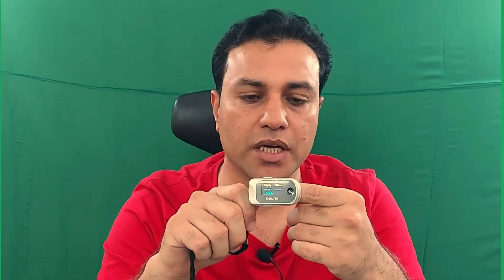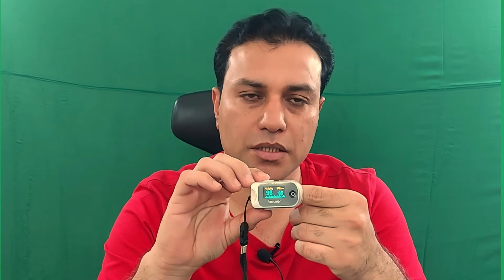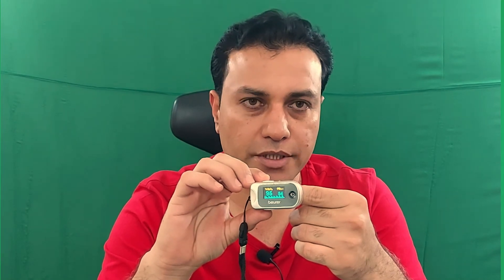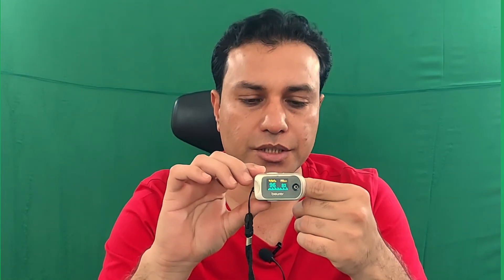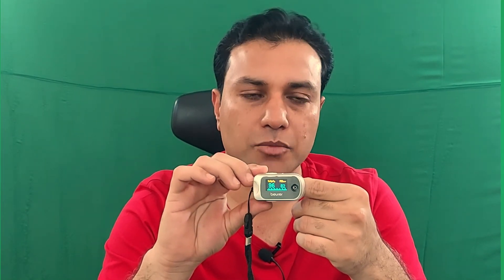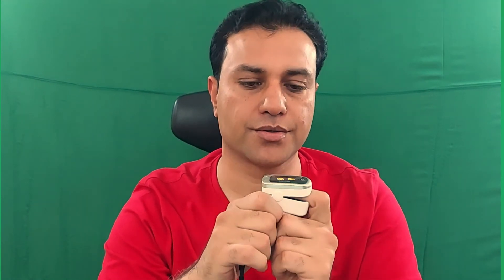One last thing about the oxygen saturation level: medical health practitioners consider above 90% to be a normal oxygen saturation level. If the oxygen saturation in the blood becomes lower than 90%, you have to seek medical assistance.